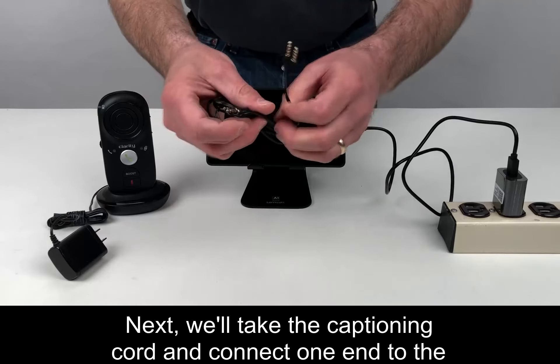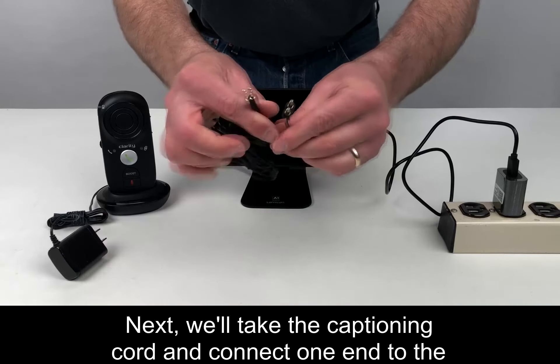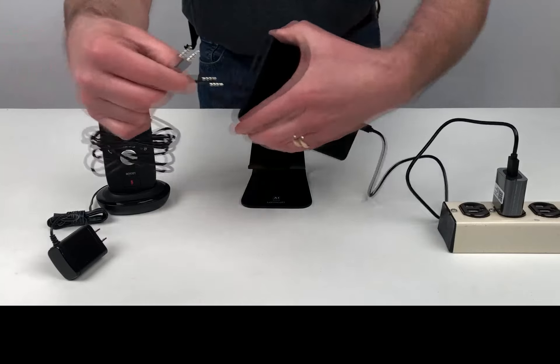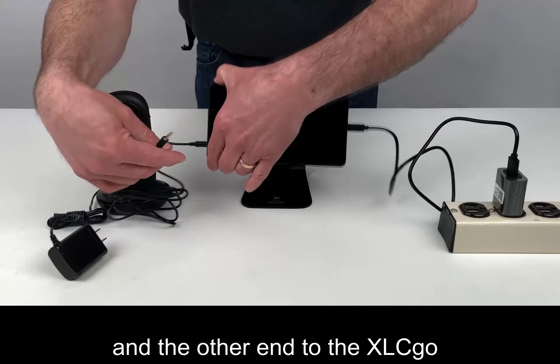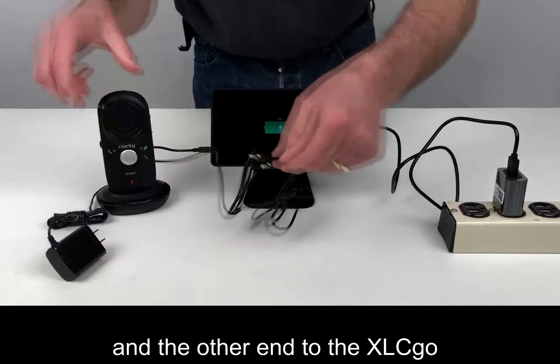Next, we'll take the Captioning Cord and connect one end to the tablet, and the other end to the XLC Go.